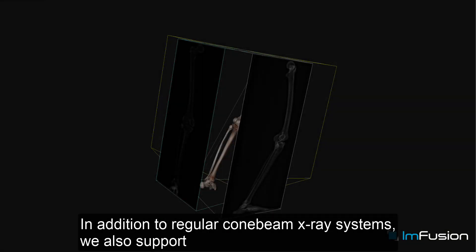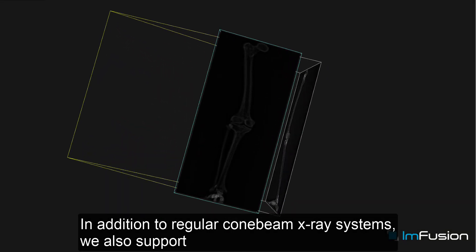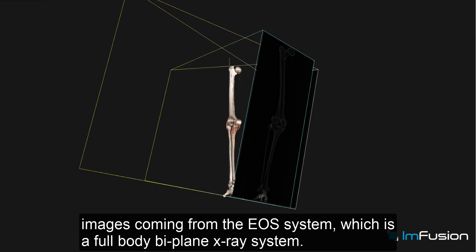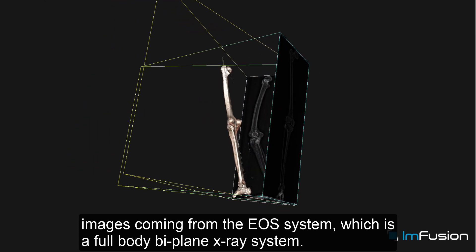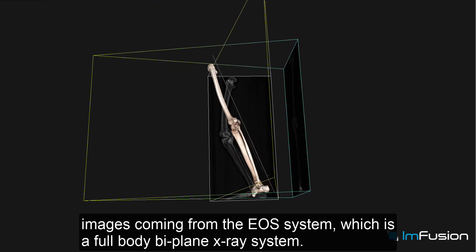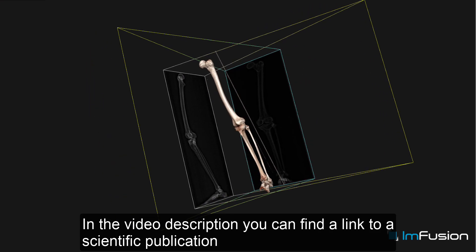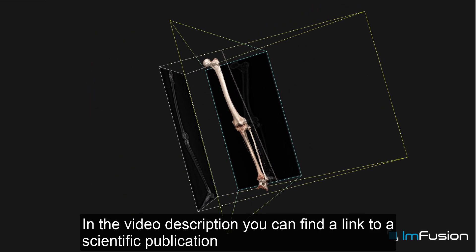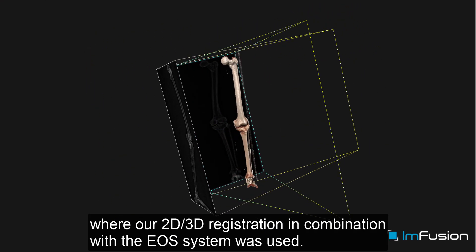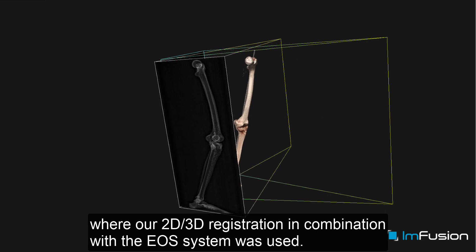In addition to regular cone beam x-ray systems, we also support images coming from the EOS system, which is a full-body biplane x-ray system. In the video description you can find a link to a scientific publication where our 2D-3D registration in combination with the EOS system was used.